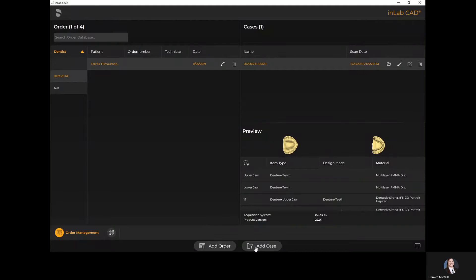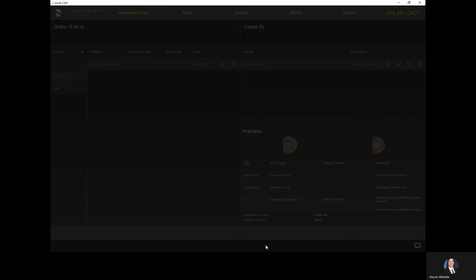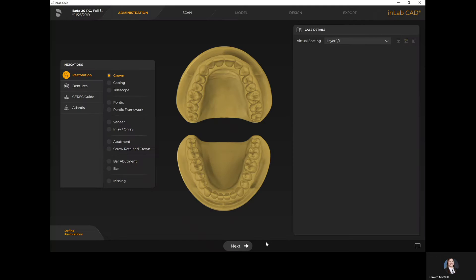Here you'll see we're in our order management screen. On the bottom of the screen we have the option to add a new order or add a new case. Add order means we're going to add a brand new patient file, whereas add case means we're going to add a case to an existing patient file. For this demonstration I've selected add new case.